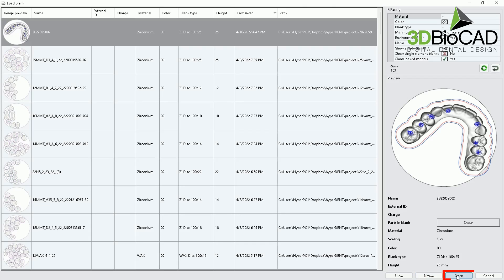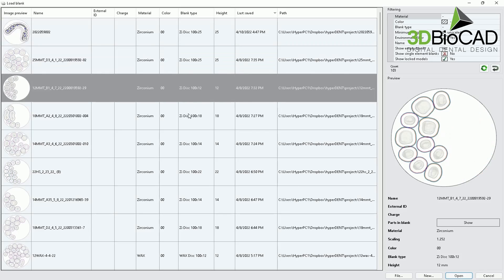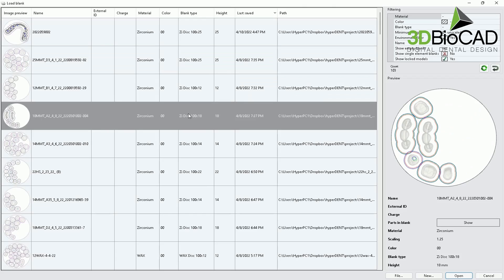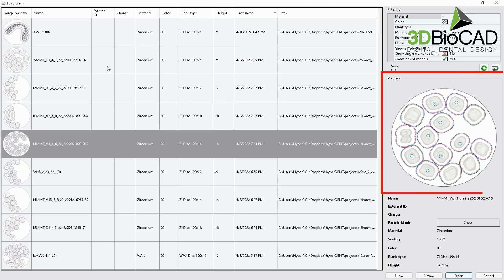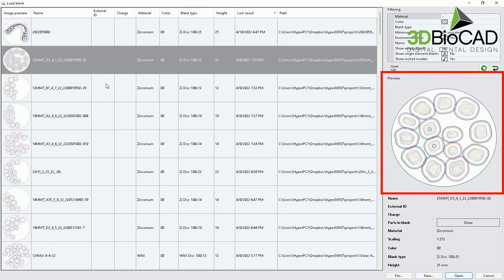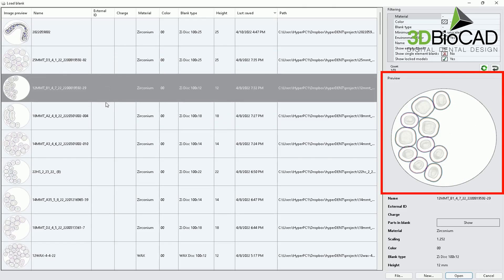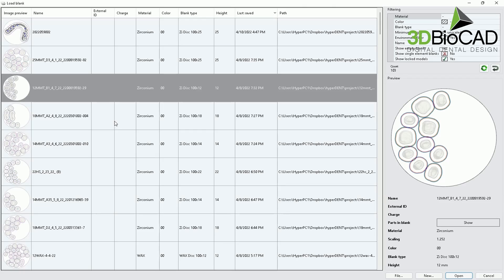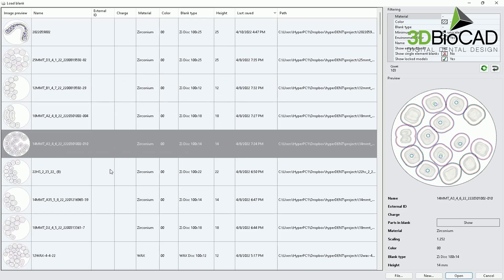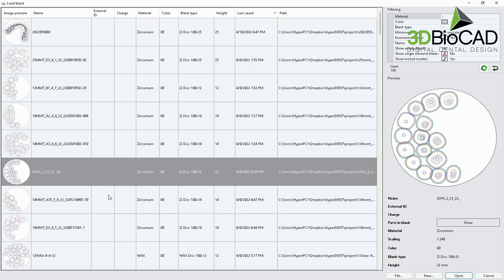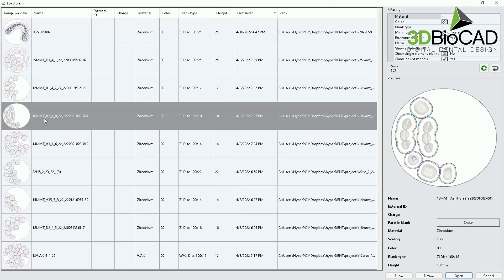If you bring your old blanks, then please go ahead and select open, then you will be able to recycle some of the blanks that you were using before. By looking at the preview photos, you'll be able to determine which block that you're trying to use again. Also, we are writing this down so that we know which block it is from the physical block.